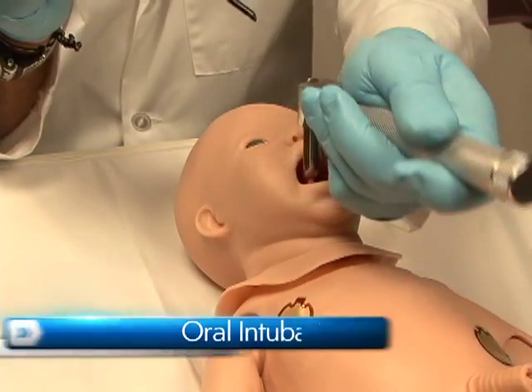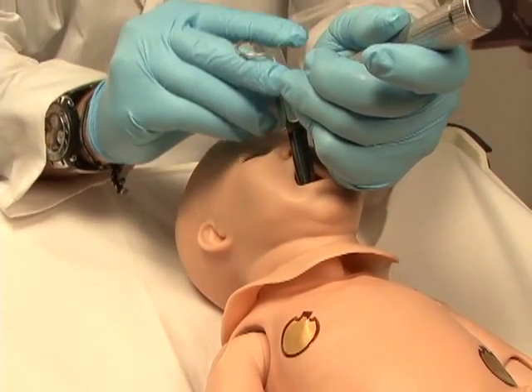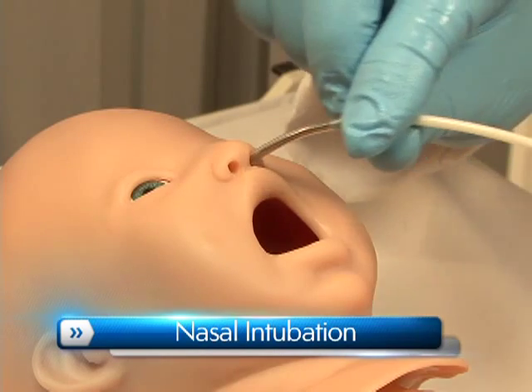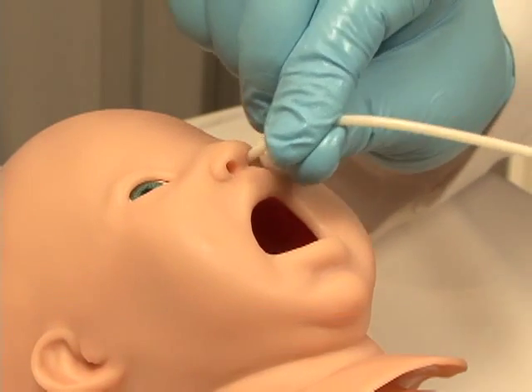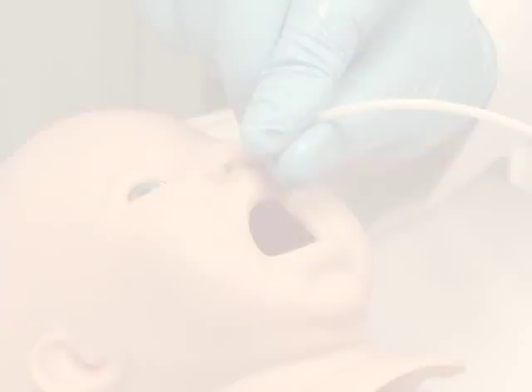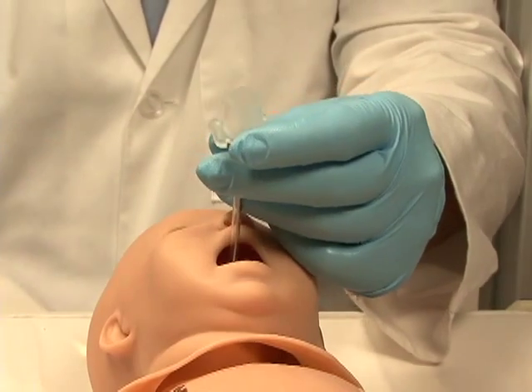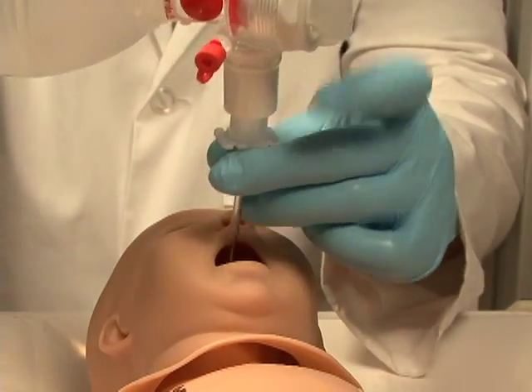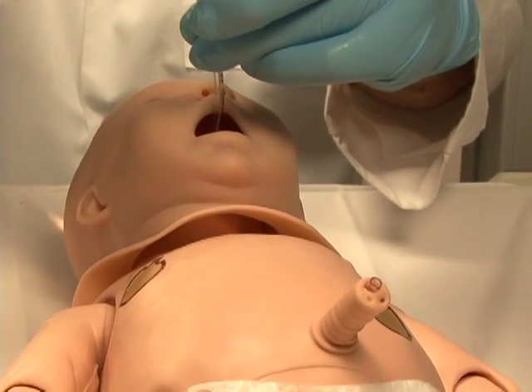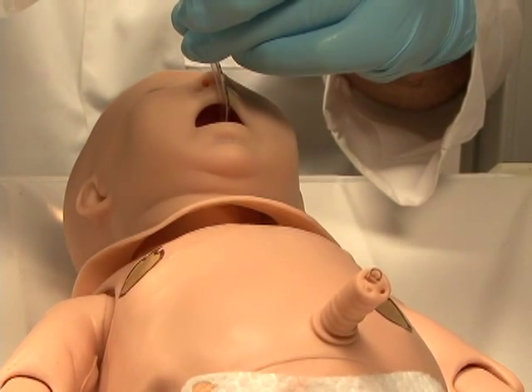Newborn HAL can be intubated orally using an endotracheal tube if ventilations are required, and nasally if a nasogastric tube has been inserted. Once intubated, sensors detect the depth of the intubating tube. Should the tube be inserted too deep, the left lung is automatically disabled, realistically demonstrating right mainstem intubation.